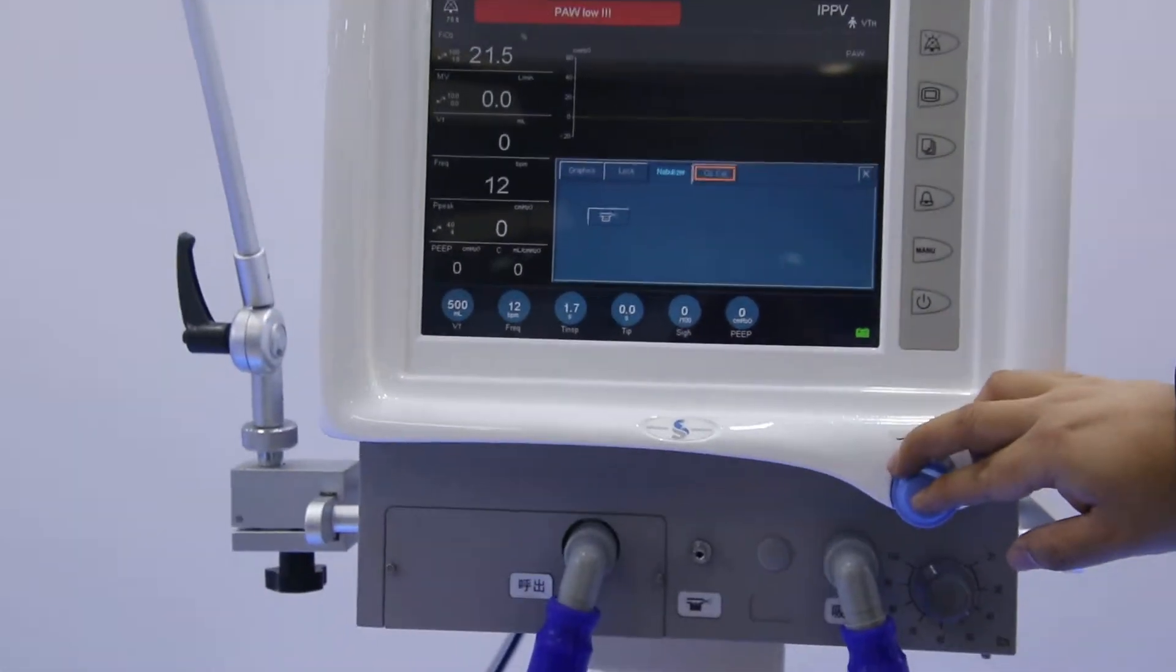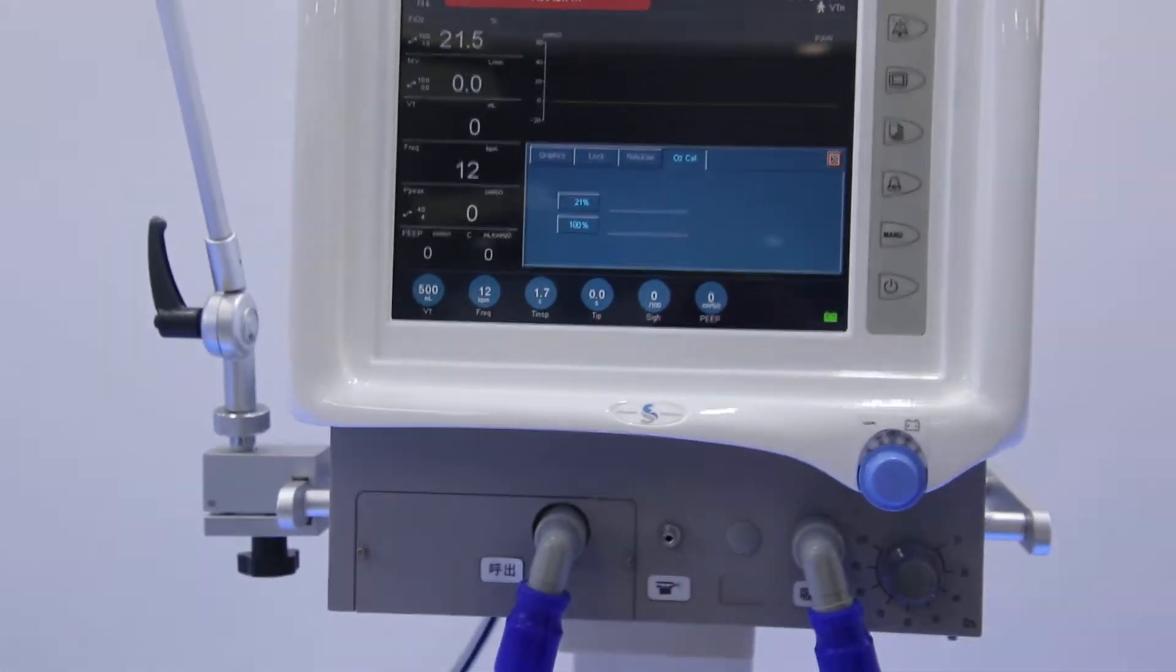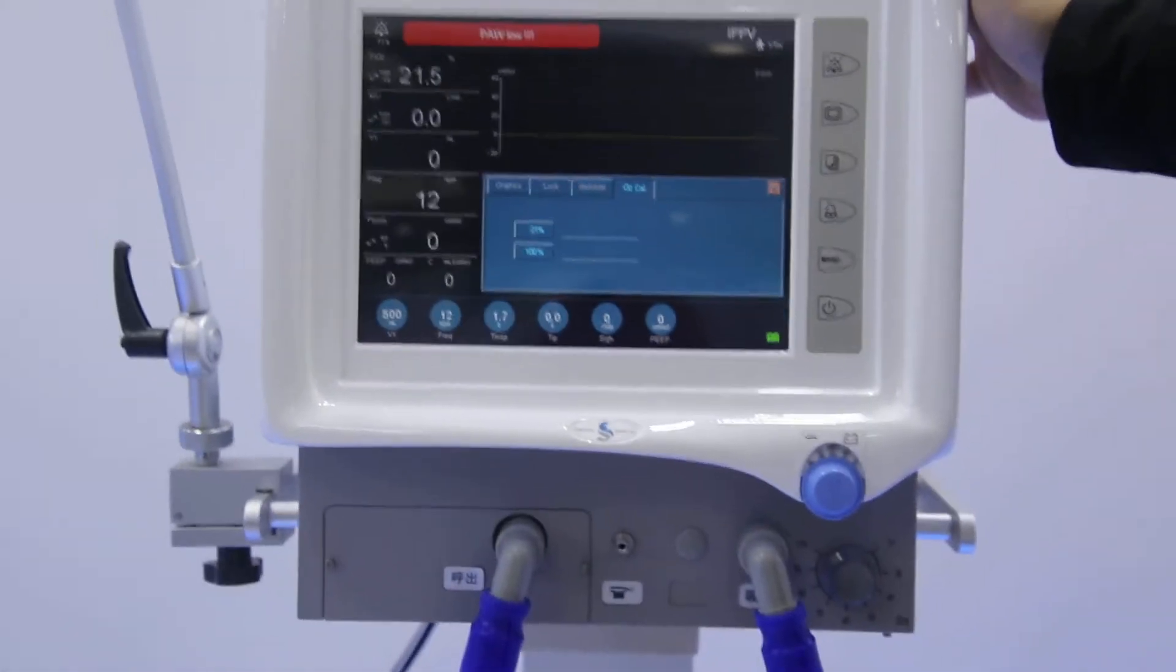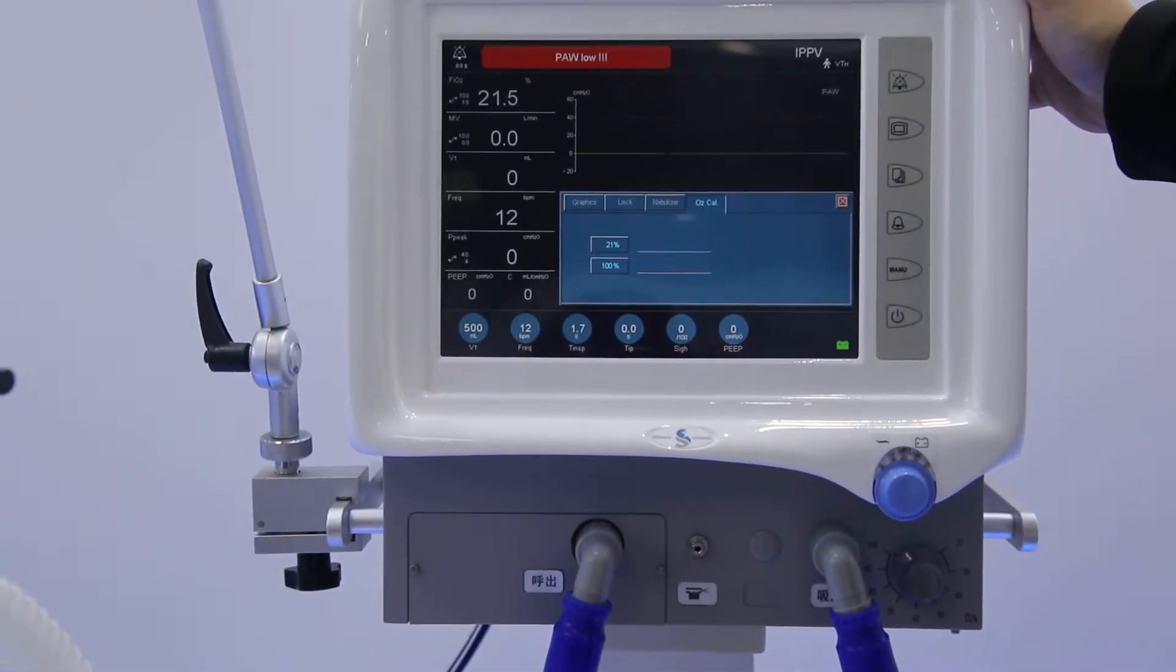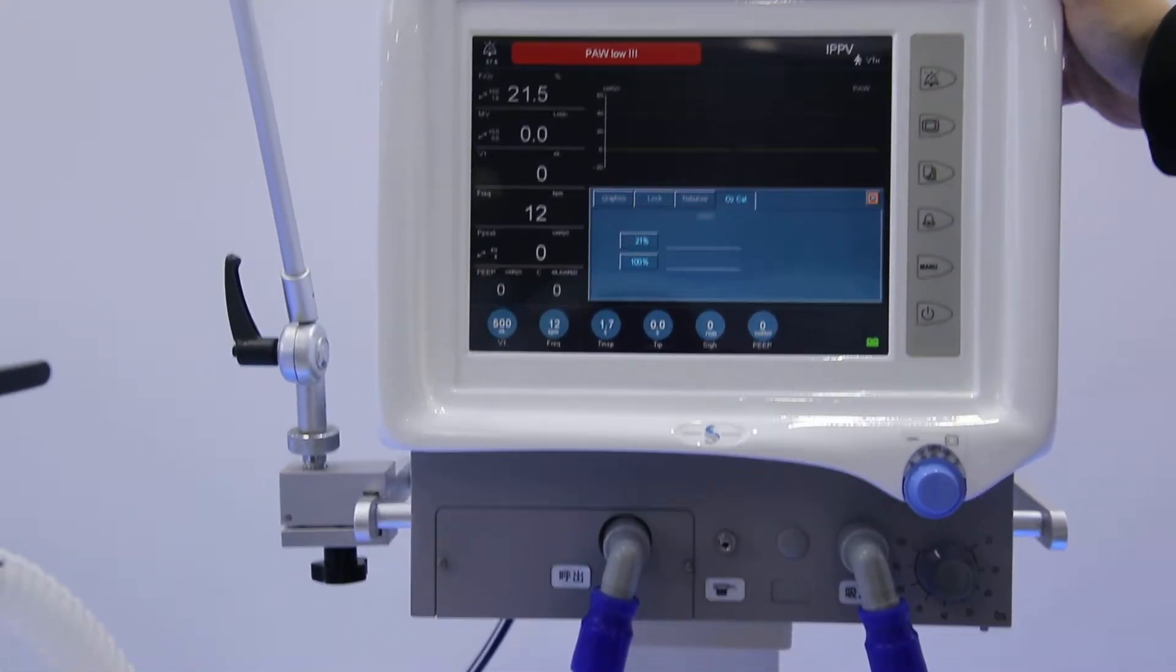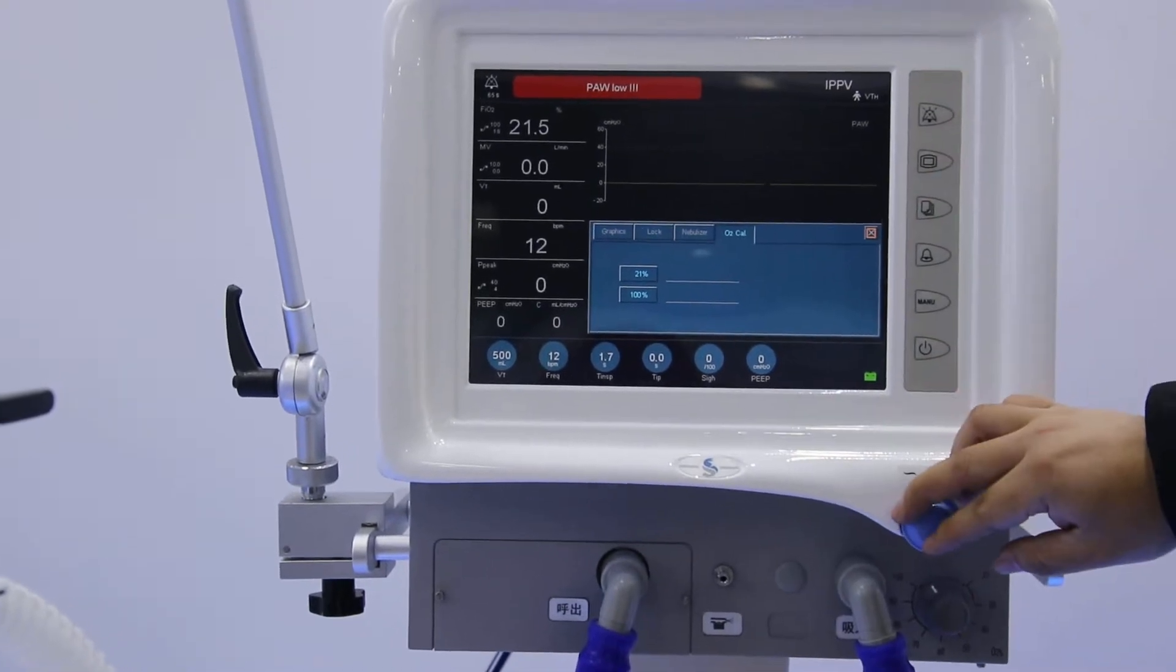The last one will be the oxygen calibration. Once we first get the machine, before the first time we use it, we will need to do the oxygen calibration. That means at 21% or also 100%.